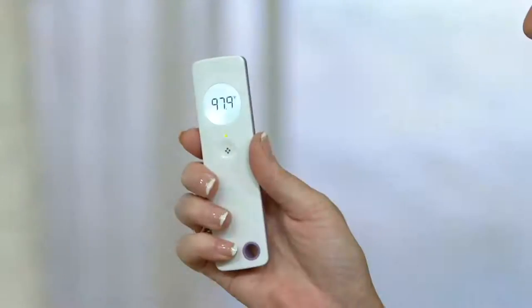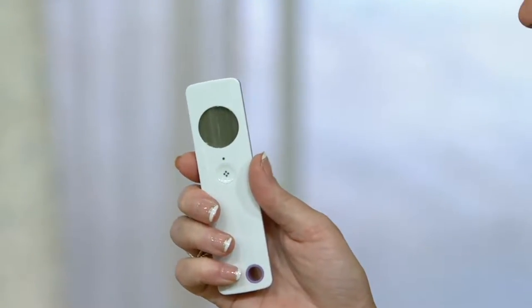In the dark, you could just say okay, it's yellow — it's not too bad. Or you see that green — they're good to go.